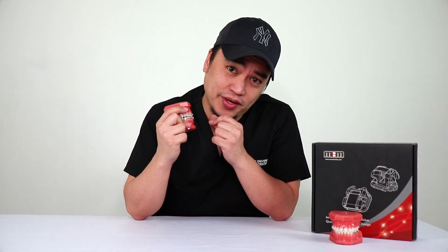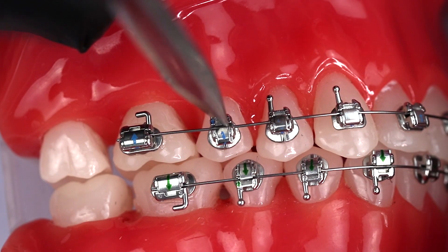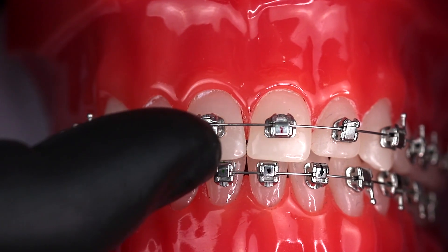The next thing that I love is the easy opening and closing of the gates with the driver. Just twist and they're all open, take my wires out, do what I need to do, and then slide them back in and slide it closed.